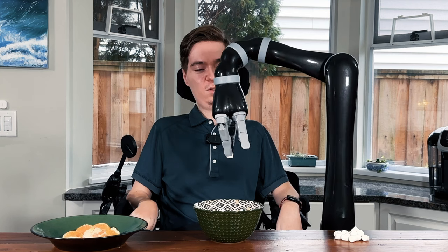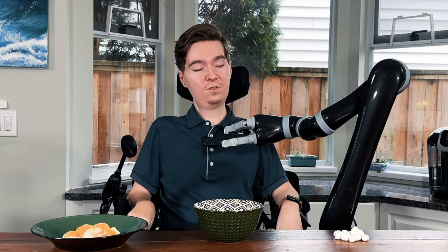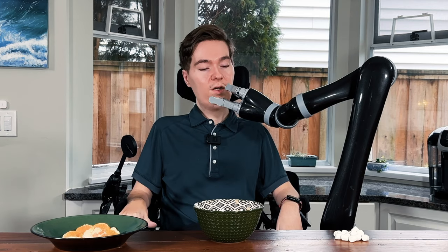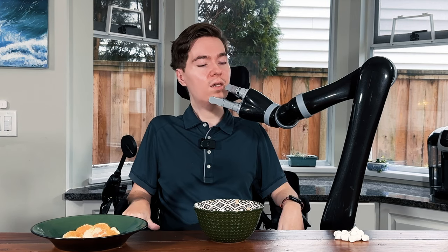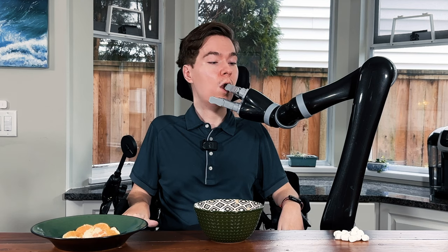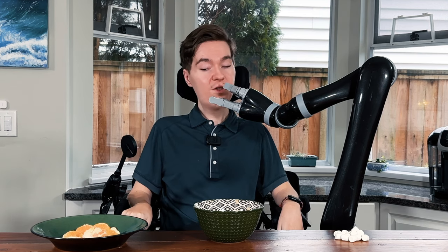So now we're just going to bring it over, going to orient and point the fingers towards our mouth. What I'm going to do is bring my mouth up to it, and when my mouth has positioned itself where I'm going to be able to catch the marshmallow as I release, I'm going to start slowly releasing. There we go — great success.